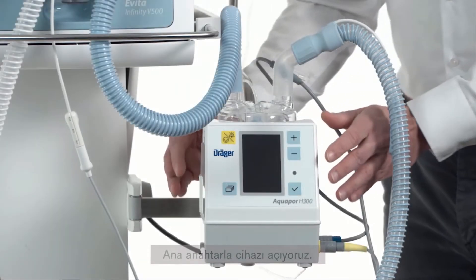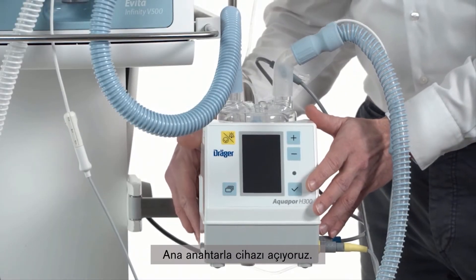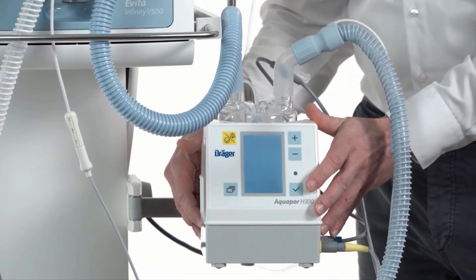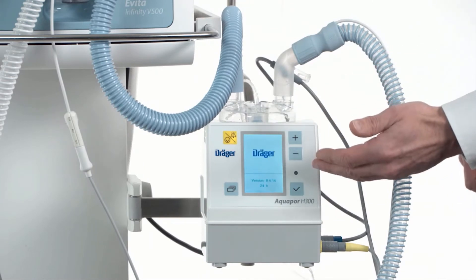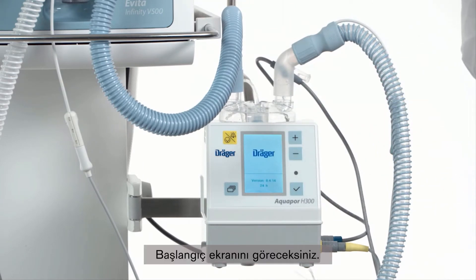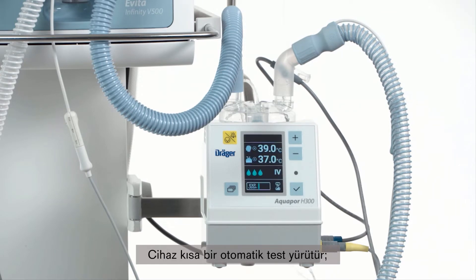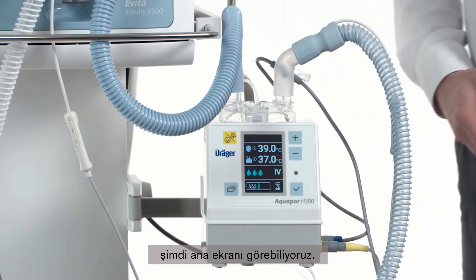We are going to switch on the device with the main switch. You will see the start-up screen. The device conducts a short self-test and now we can see the main screen.